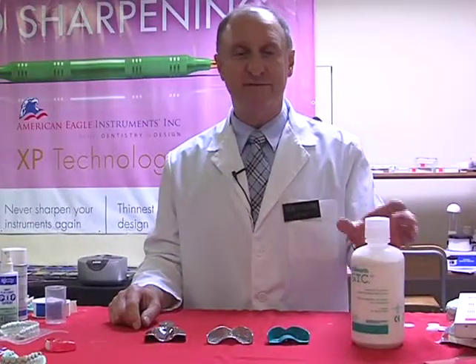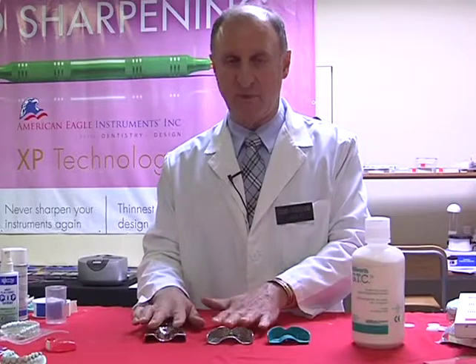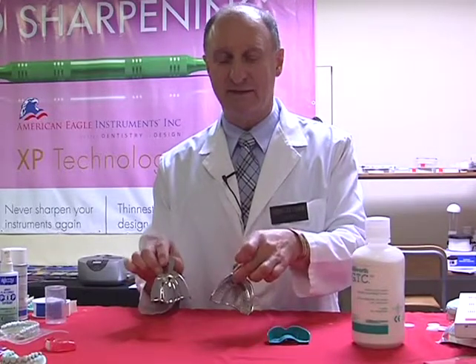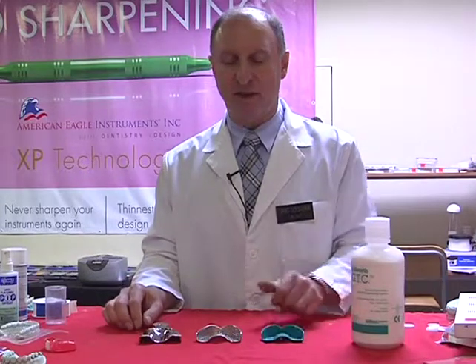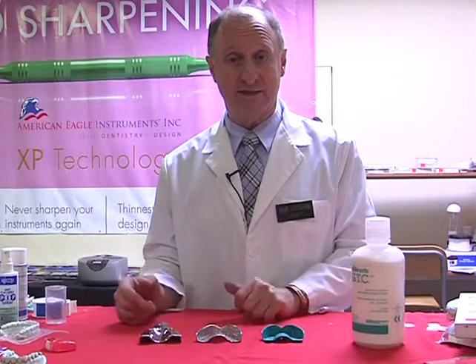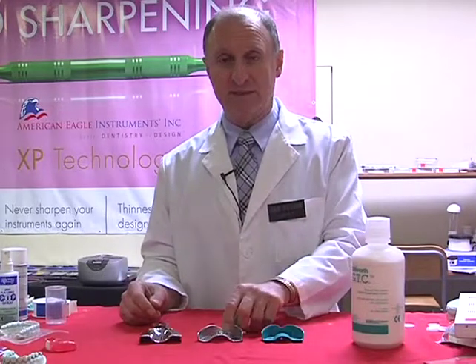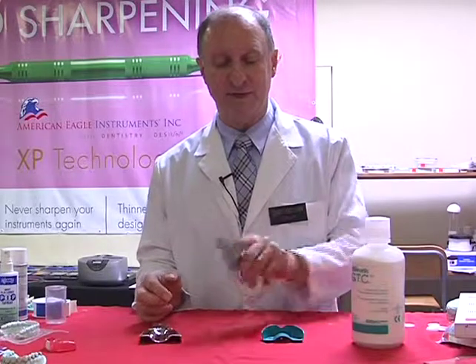There are a variety of different ways of keeping our trays nice and clean. Now of course that's more important when we're talking about our metal trays. Remember, our disposable trays are a one-time use. But we need to clean the alginate as well as the stone and plaster. Of course, it's much more difficult with a perforated tray where the alginate's seeping through the perforations.